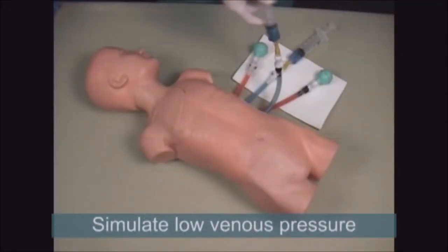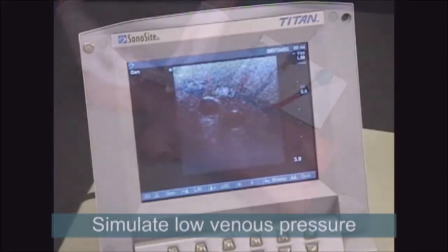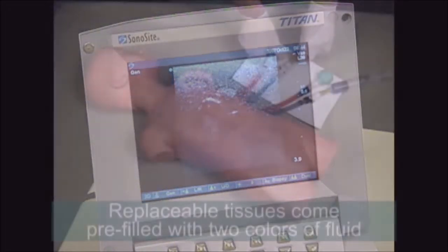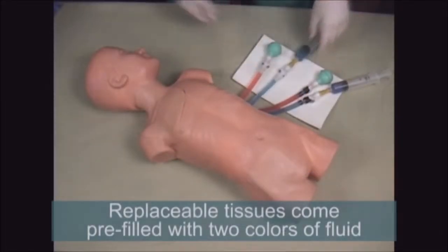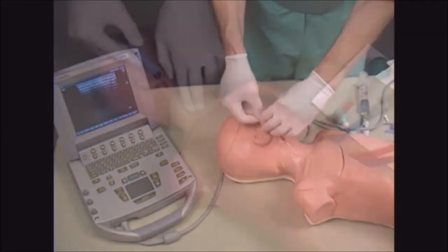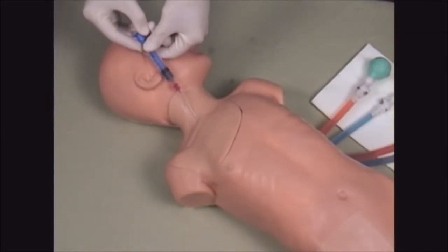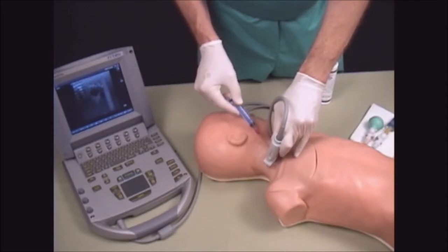Both the neck and femoral tissues are equipped with a syringe, so that venous pressure can be adjusted, allowing the user to simulate low blood pressure complications. The simulator's tissues are replaceable and come pre-filled with 2 colors of simulated blood. Each tissue should last for approximately 50 to 100 full catheter insertions, or hundreds of needle sticks per access site. In addition, this trainer allows the user to practice real-time ultrasound guidance during catheter placement.